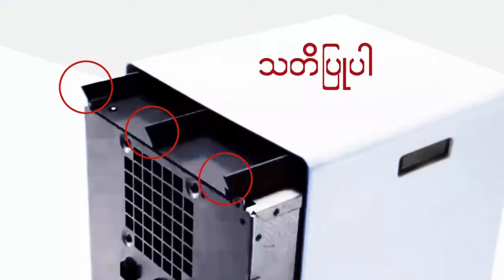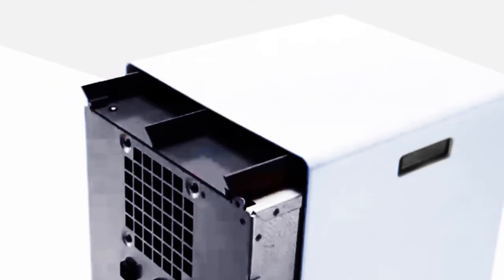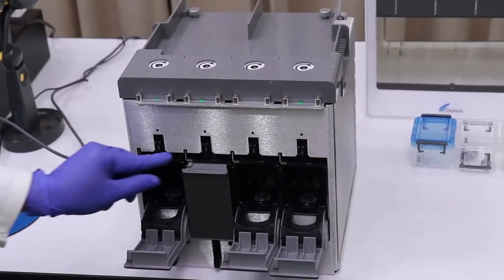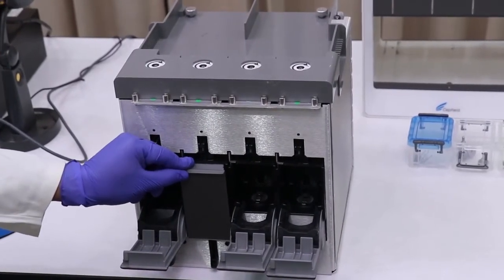Turn the plunger rod screw above the module in the up direction slowly and completely. The module door will open.